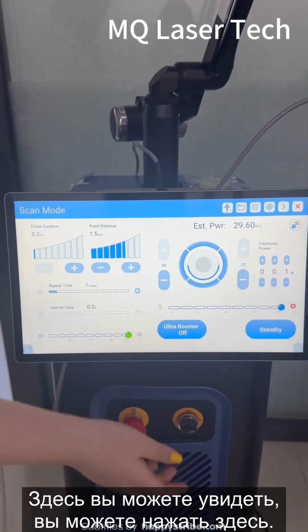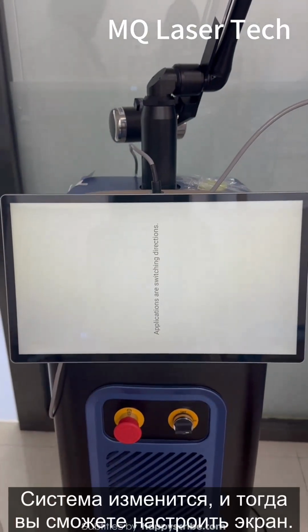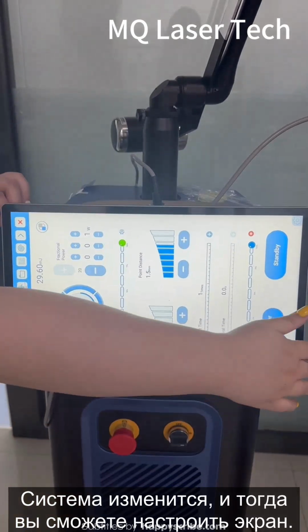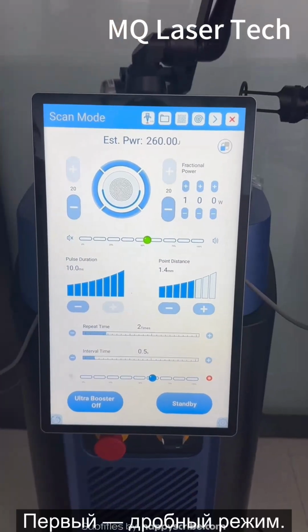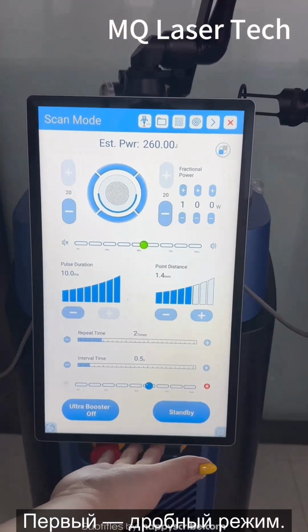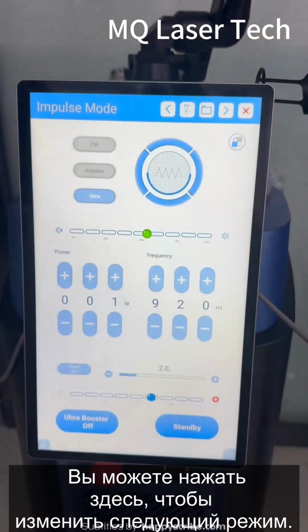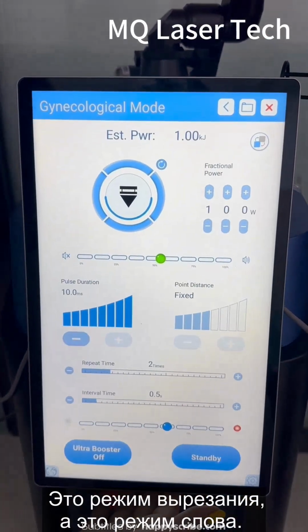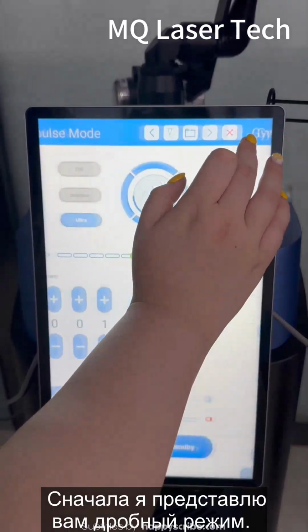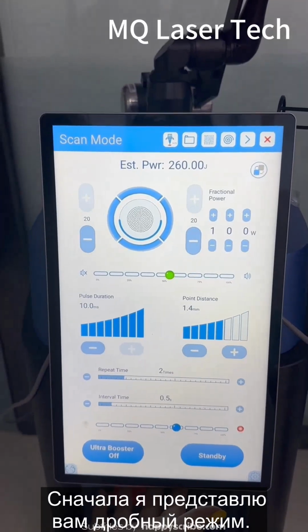Here you can see, you can click here. The system will change, and then you can adjust the screen. The first one is fractional mode. You can click here to change to the next mode. This one is the cutting mode, and this one is the vaginal mode. First, I will introduce you to the fractional mode.